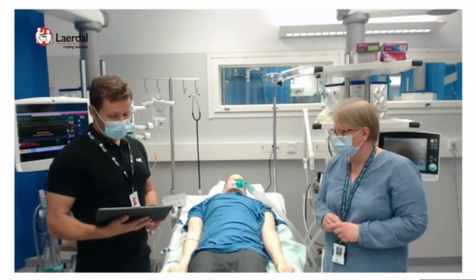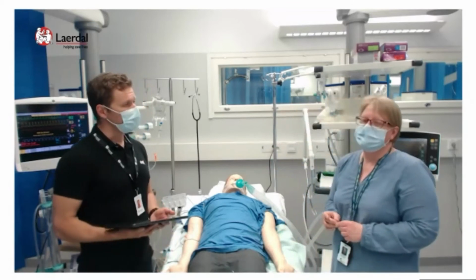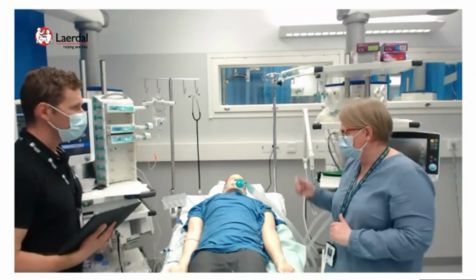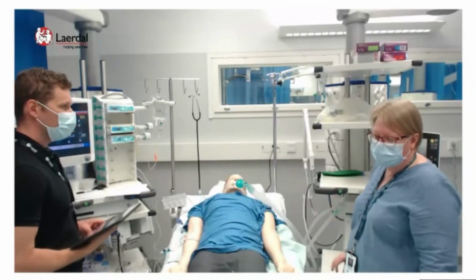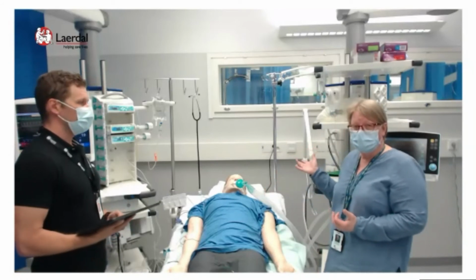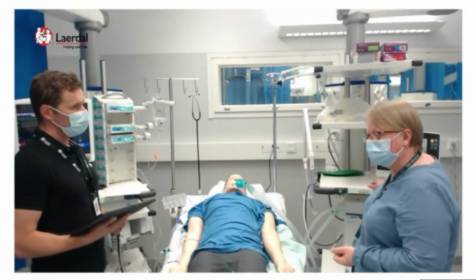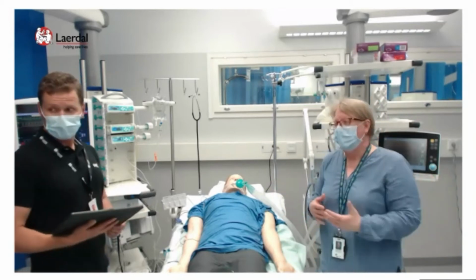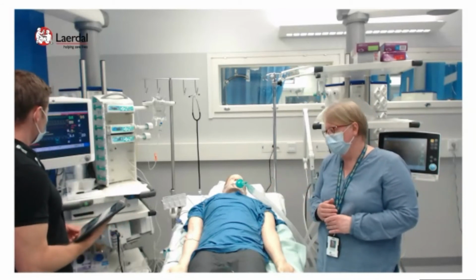So there are questions. Yes, a comment that we should change to pressure volume control and relax the patient. Yeah, I agree totally. Okay, should we do that? Yeah, we should do that. I have to change from here and put the settings very well, and that is what our participants would do themselves with the mannequin and the ventilator, so they can fix it up the way they like to do. And then we could discuss the settings and how the patient would react to this situation.